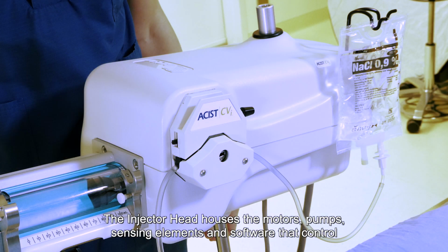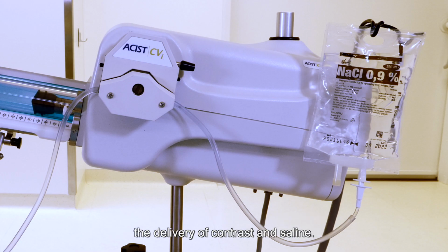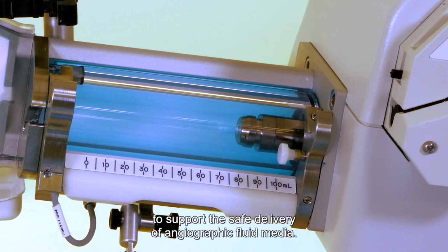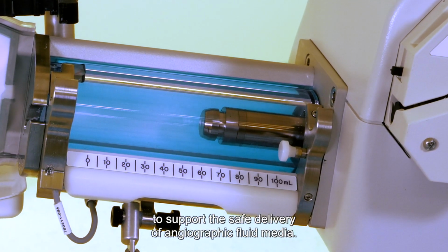The injector head houses the motors, pumps, sensing elements, and software that controls the delivery of contrast and saline. The injector head includes safety features to support the safe delivery of angiographic fluid media.